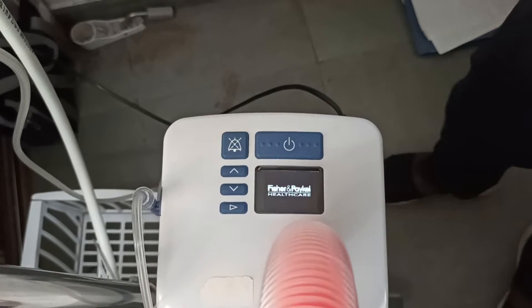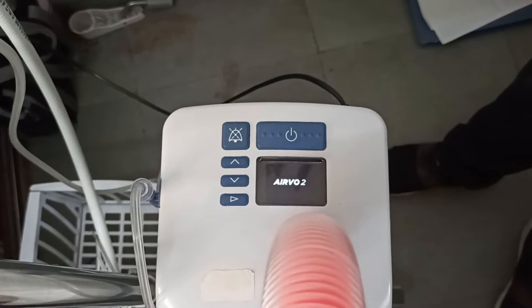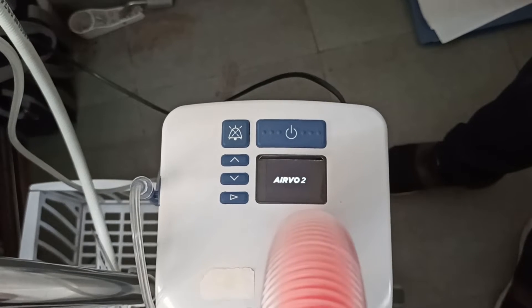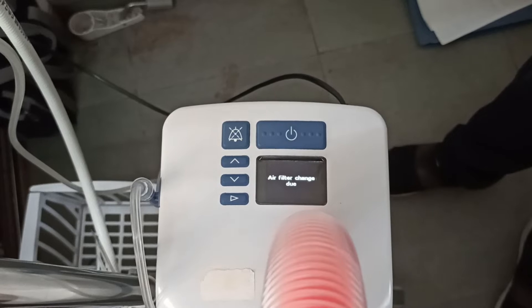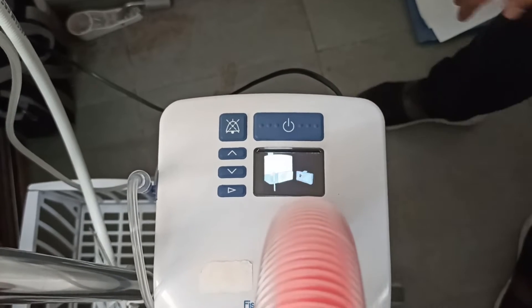At the time of disinfection, you have to remember that your oxygen will be completely shut off — there is no oxygen provided to the machine. Also, the air filter needs to be changed.